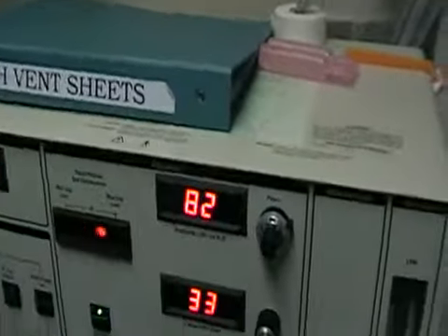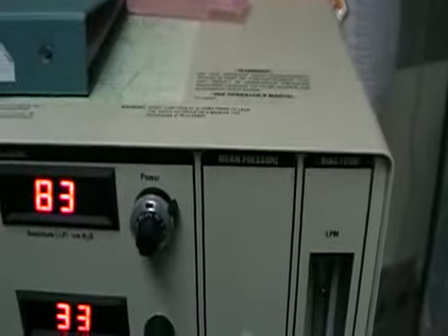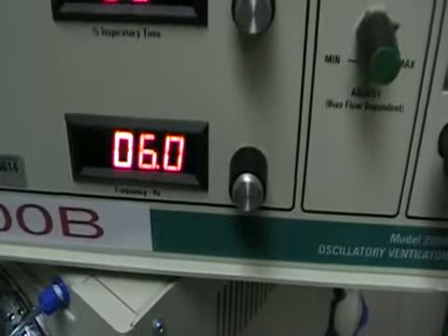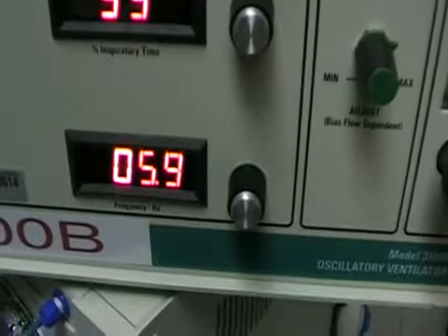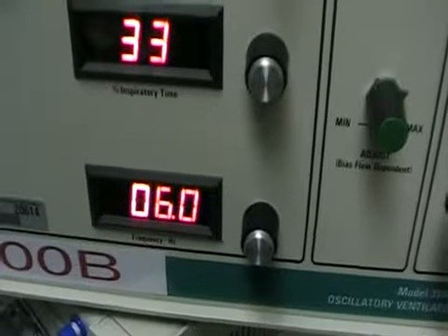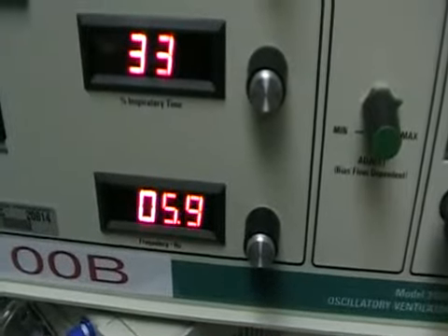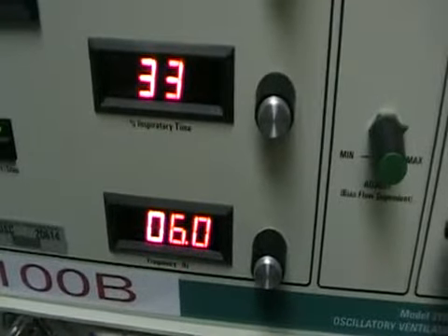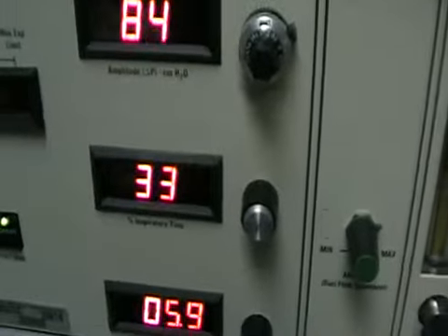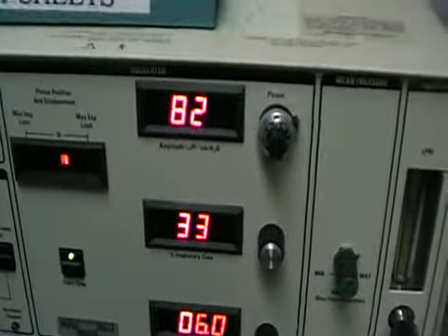Let's talk about ventilation strategies. To control CO2, the first thing we're going to do is manipulate the power — going up on the power moves more volume with the piston, which will ventilate more. The other thing we can do is adjust frequency: as you increase the frequency, you are shortening the time the piston has to displace volume, so you actually make your tidal volume smaller. Going the other direction, as we decrease frequency, we allow more time for the piston to displace, and therefore we move larger tidal volumes. As we approach a frequency of 3, we are starting to approach low tidal volume strategies that are currently the benchmarking ARDS Network standard. The final thing would be inspiratory time — increasing that to 50% gives more time for the piston to displace. You can also consider a small cuff leak on the ET tube to indirectly blow out some more CO2.